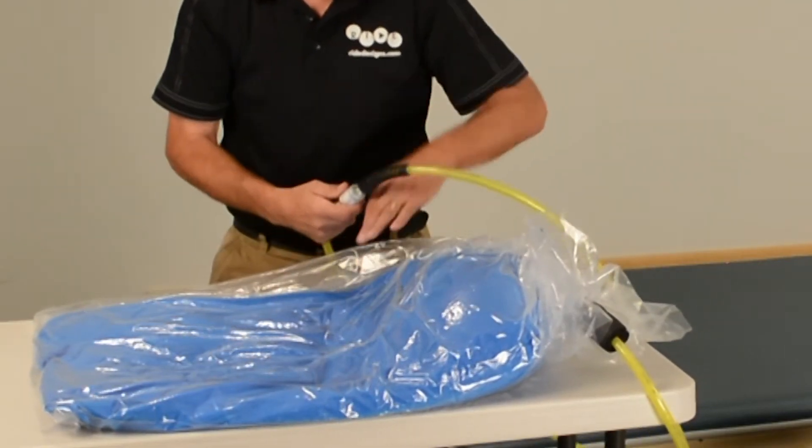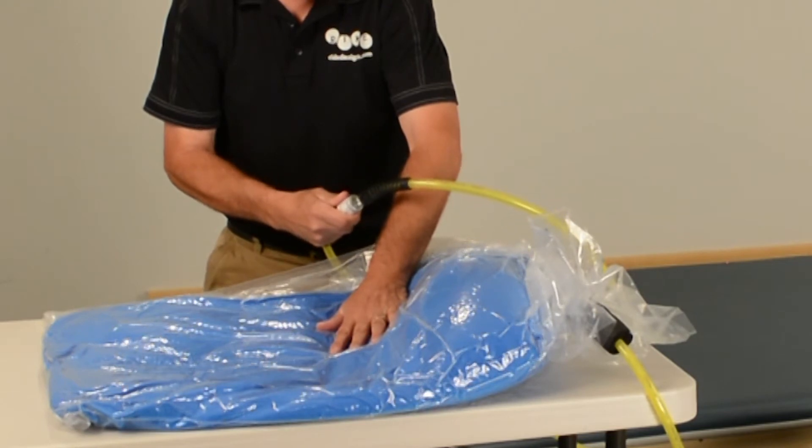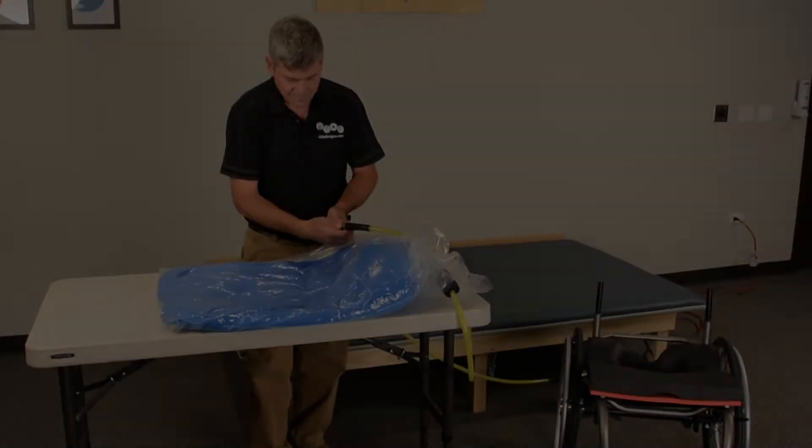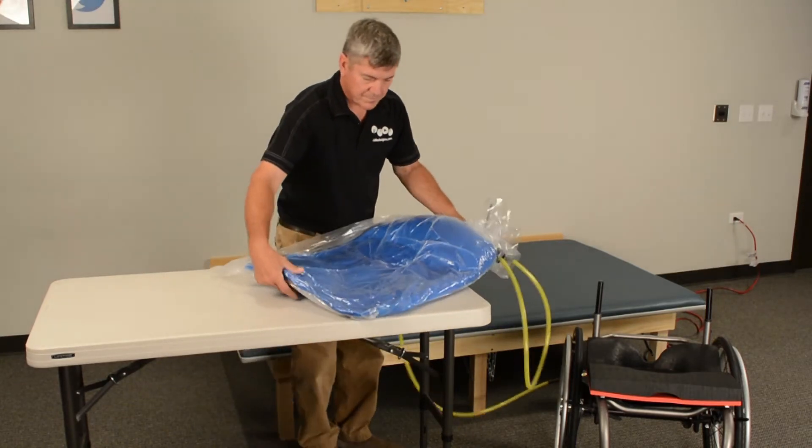Use the slide valve and move it towards bag hard. Find a pliable yet stable bead mass. Then move the bag to the shape capture base and begin the pre-shape process.